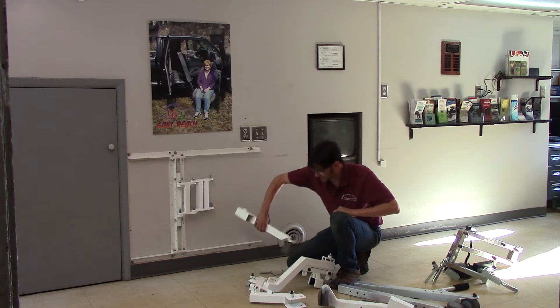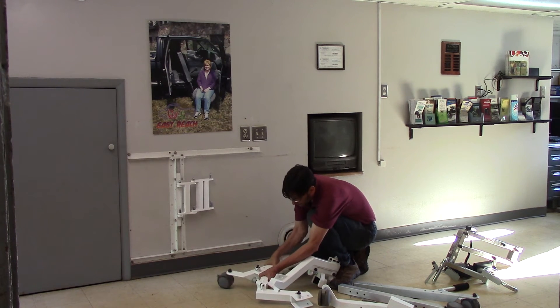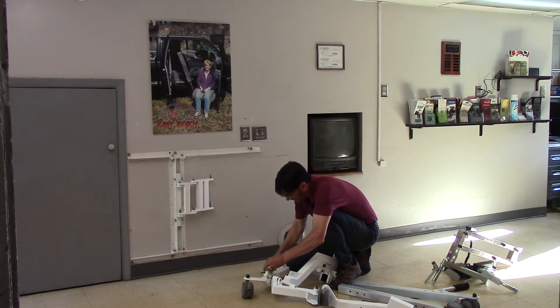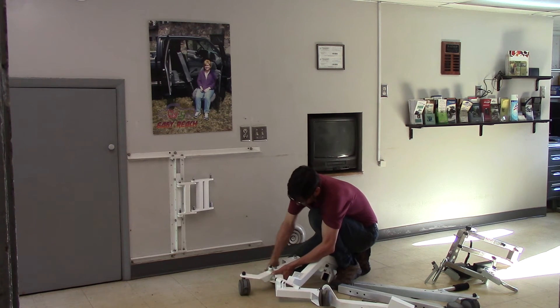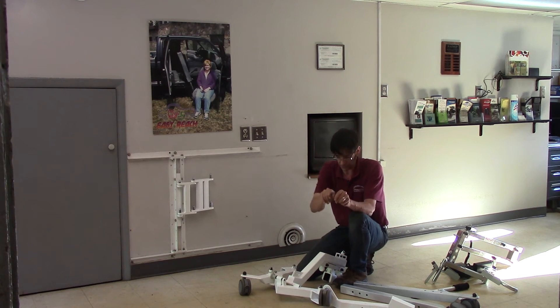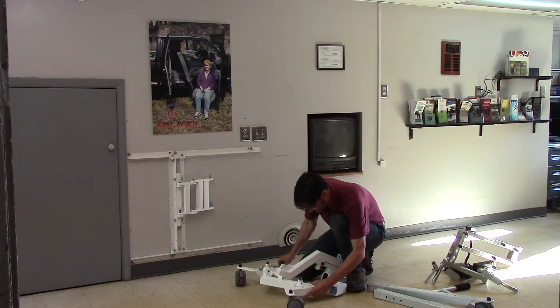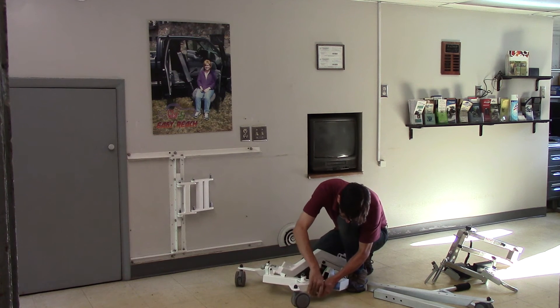We'll go over the process of reassembling it. Take this right here and put that pin right in place. You've got to get it lined up just right. Once you've got the pin in the right spot — which can be a little tricky — press it down in and lock it in place. You'll notice that these pins actually lock in place to make sure you don't make a mistake. Now do the same thing and put that leg in place. You can kind of peer down from the top and it shows you right where you need to be. Put that in place and lock it.